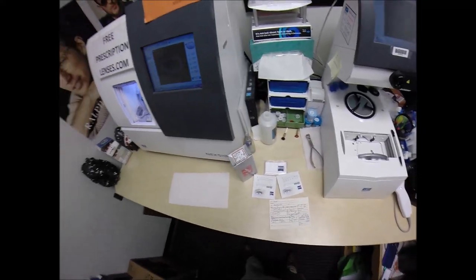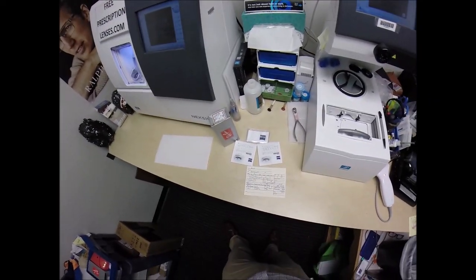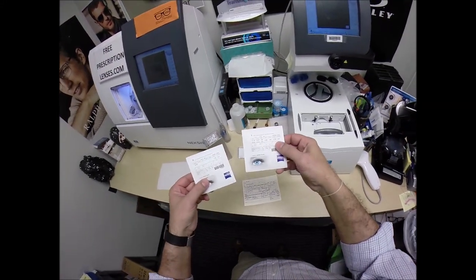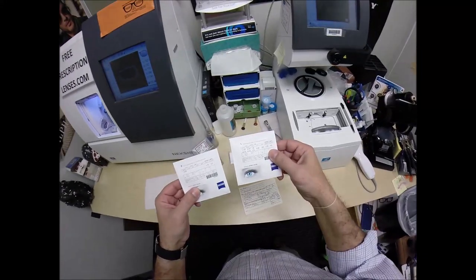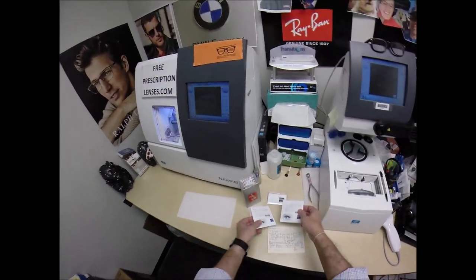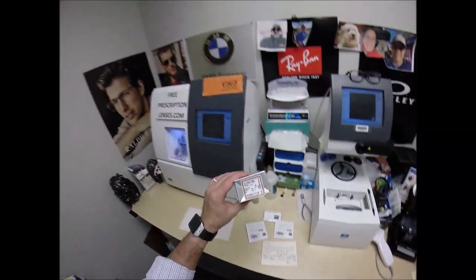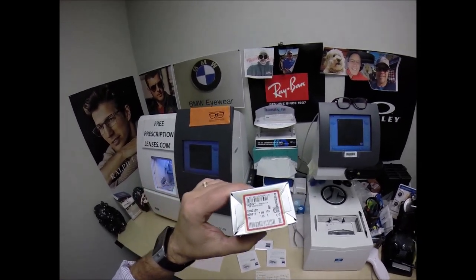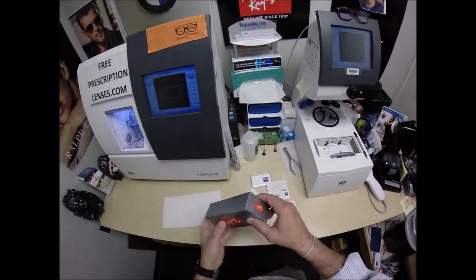Looking MoBetter, and showing everyone else how I bring that loving feeling back to glasses when I cut the Zeiss photochromic Pioneer Green lenses with DuraVision Silver — that's an anti-glare, by the way — for your Ray-Ban 2132 color 6053, the blue crystal, in the 55 eye size.